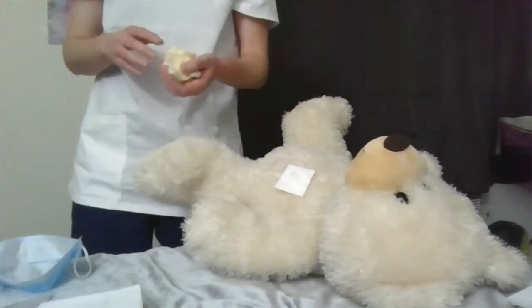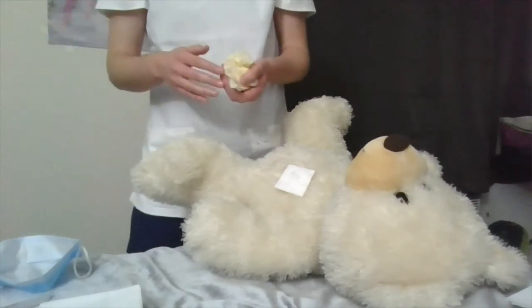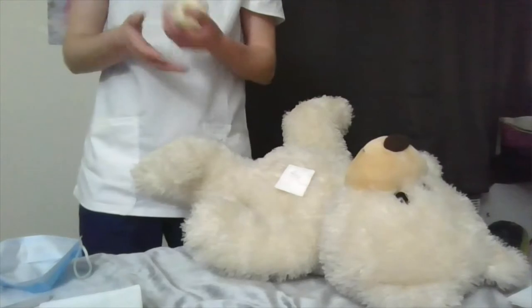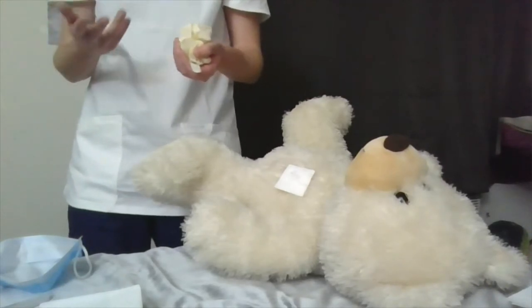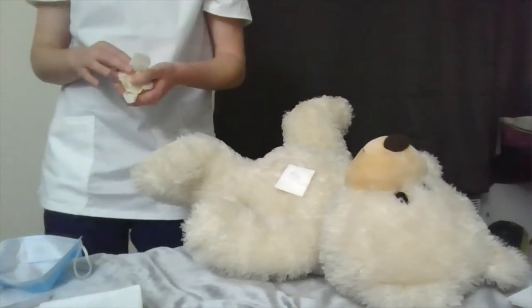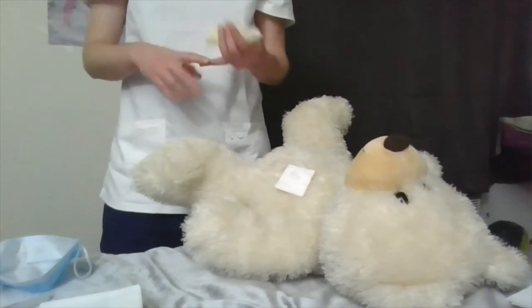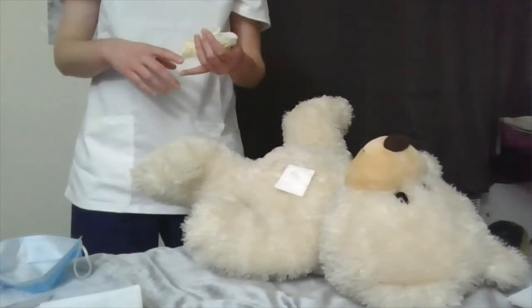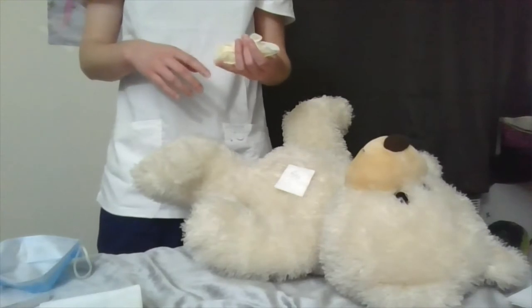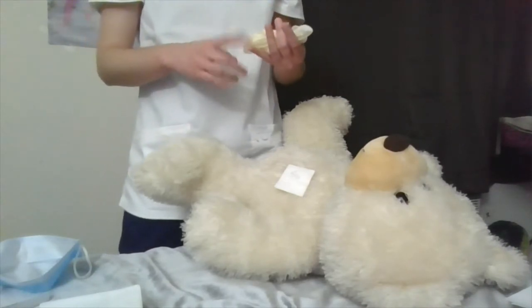I'm going to start off with identifying different types of central lines. The first one is a non-tunneled — it's a short-term catheter used for up to about six weeks, with multiple lumens. It's indicated for IV therapy, blood sampling, central venous pressure monitoring, and it has a greater risk of infections.